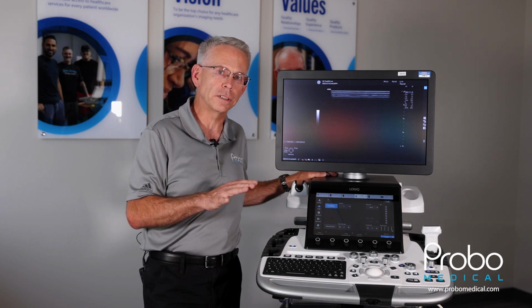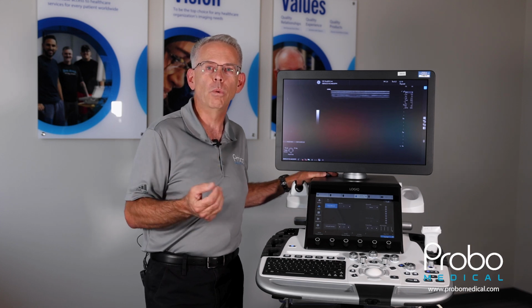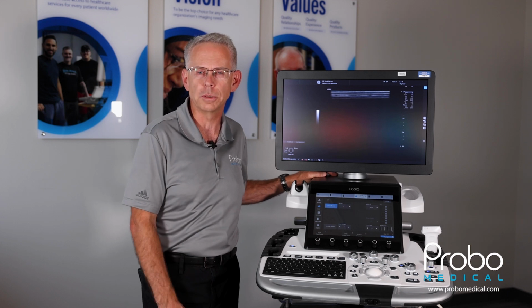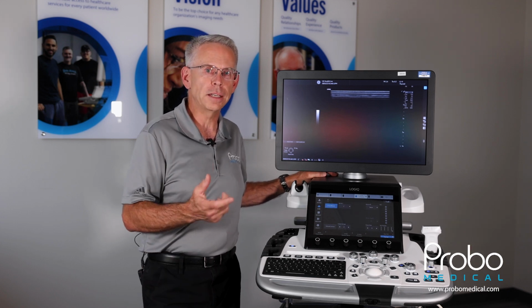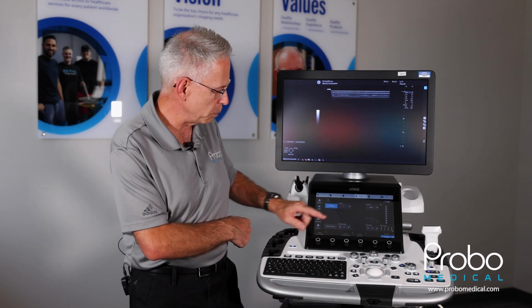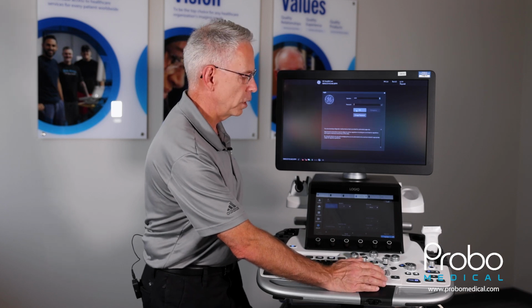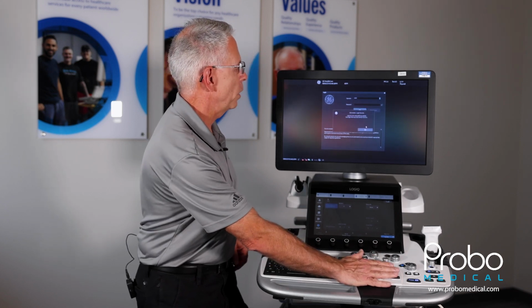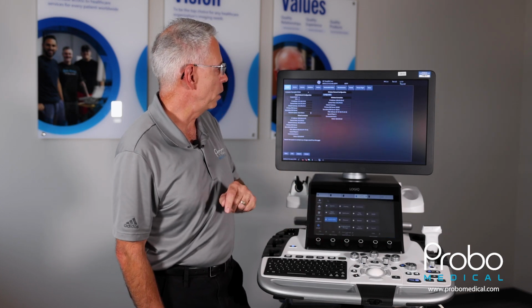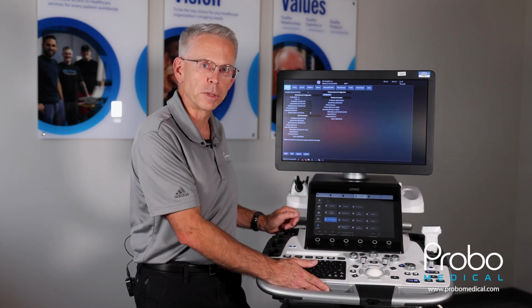If you're going to connect wirelessly, you need to be sure that you have the wireless password and you need to know what wireless network you're going to be connecting to for your hospital, clinic, or office, whatever it may be. So with all that being said, let's dive into the buttons. We're going to start off here on the 2D imaging screen. We're going to push the utility button, and then once we log on to the system, we will go ahead and push the connectivity button, which will bring us to the TCP IP screen, and we'll move on from there.